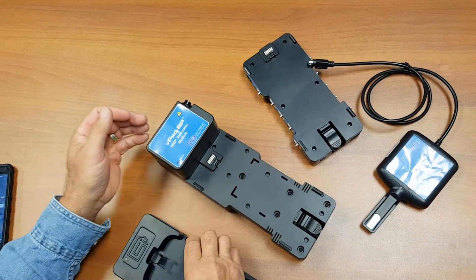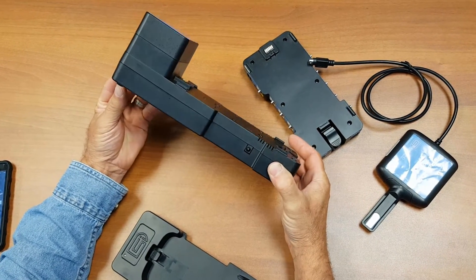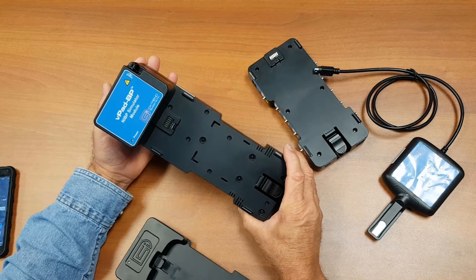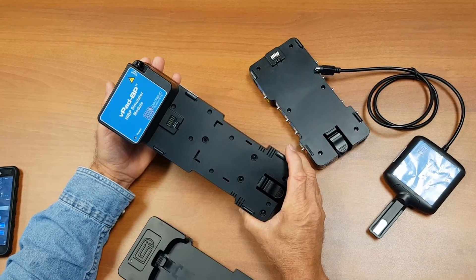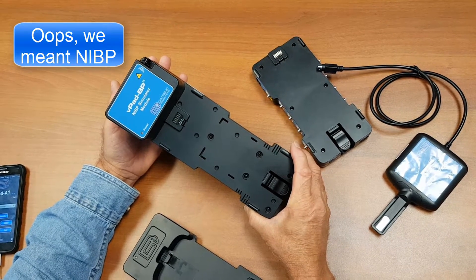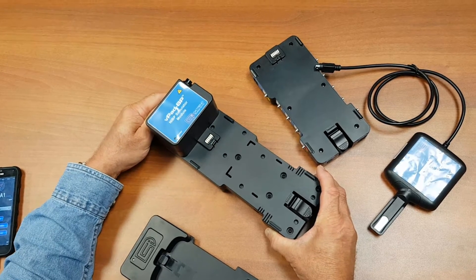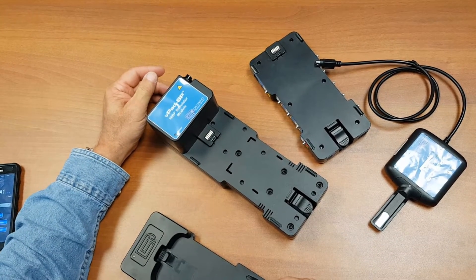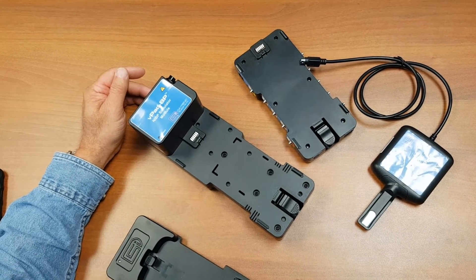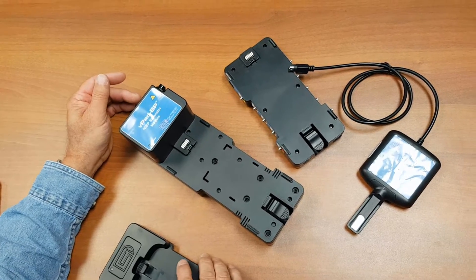The third module is the NIBP simulator module. It has a built-in pressure pump. It senses the pressures and generates the pulses necessary to simulate the different NIBP simulations that are required. It also allows you to do static pressure testing, air leakage testing for the NIBP unit itself, and some other additional pressure tests.